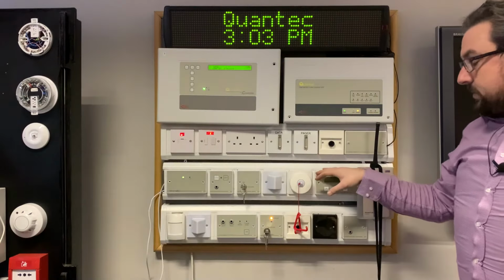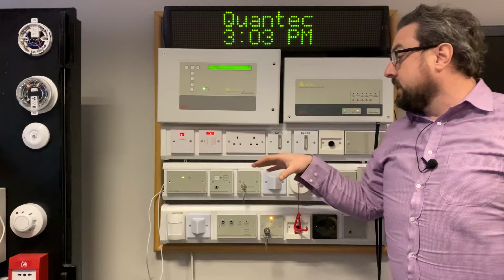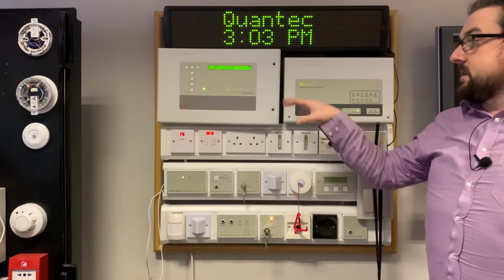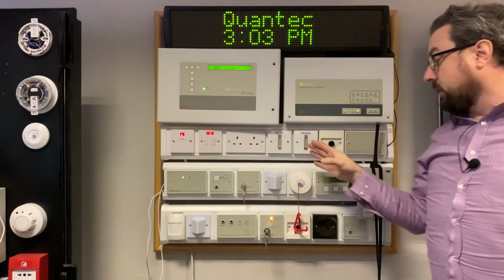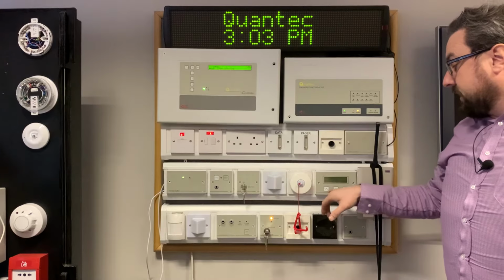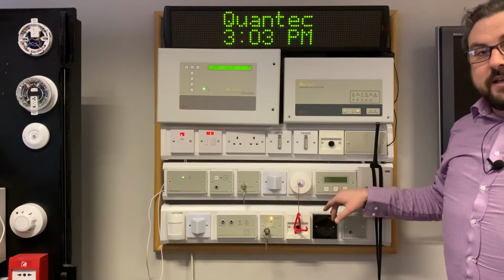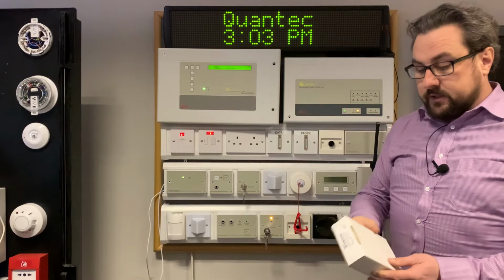And in your corridor displays, you would generally have them set up. If you had an A, B and a C wing, you could route all of the calls for units A, B and C through to your main controller so that everything displays on your main controller. But if you only want the nursing staff in the adjacent areas, they would just look at the corridor display for the area they are in, and all the calls for unit A would just be routed to unit A.